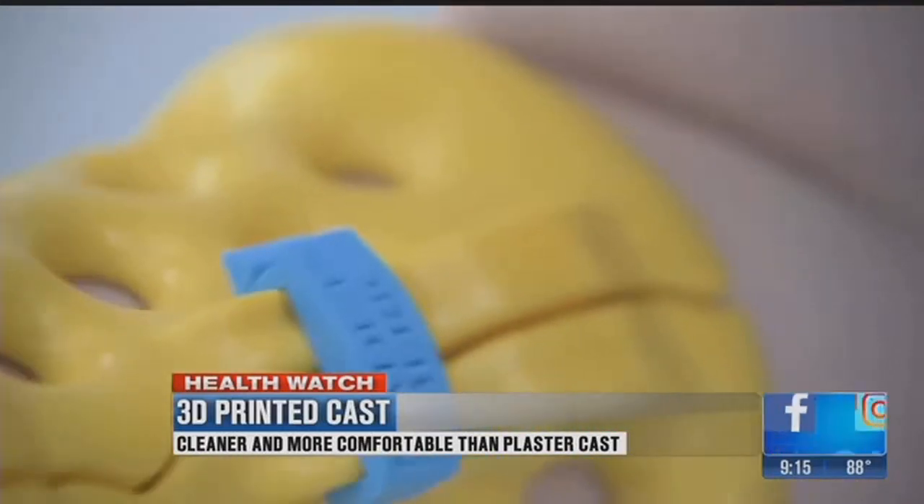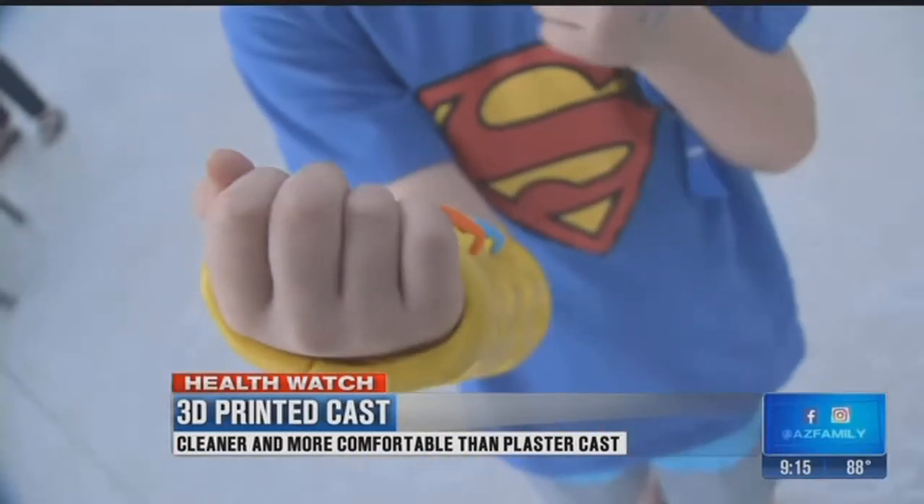With this device it's a hard plastic that has a mesh design — there's all kinds of holes in it. Dr. Michael Fitzmorris says it is actually a 3D printed cast called Active Armor. It protects the injured area but allows water to penetrate through. You could take a shower, you could swim, you can be active in your lifestyle.